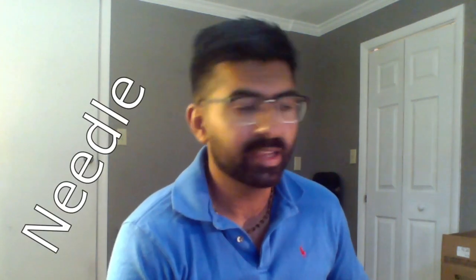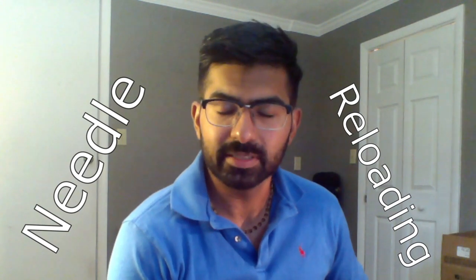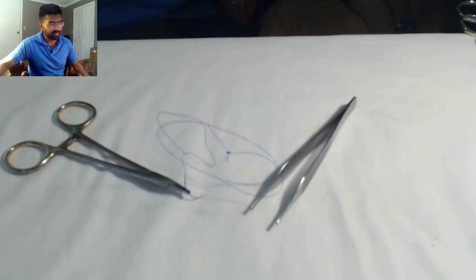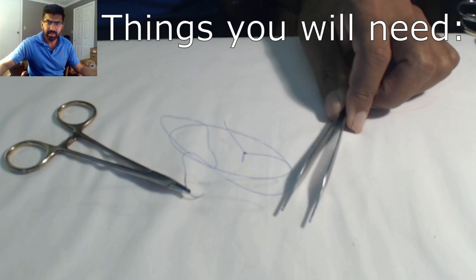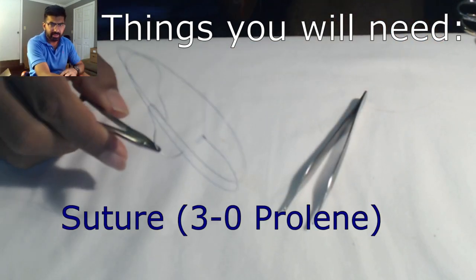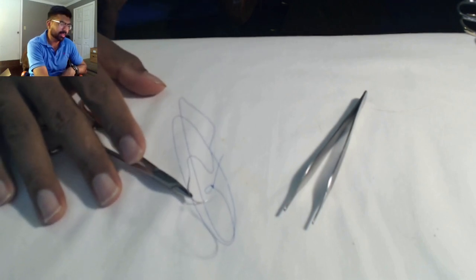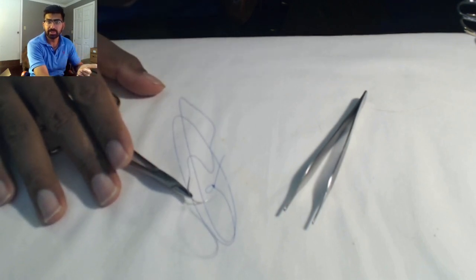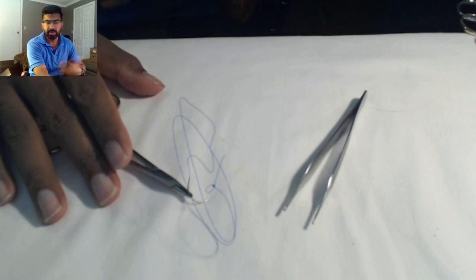Today, specifically, we're going to go over how to get the needle back to the needle driver. I've broken it down into three major ways that most people do it, and we'll go over how we can practice these techniques. We'll need a pickup of any kind, a needle driver, and any kind of suture. The focus will not necessarily be on the needle itself until the last portion.